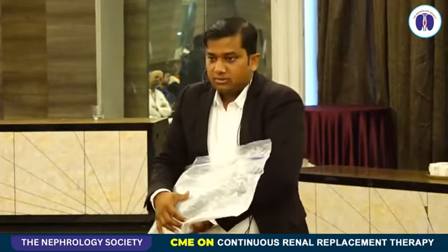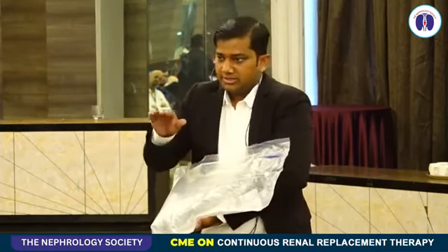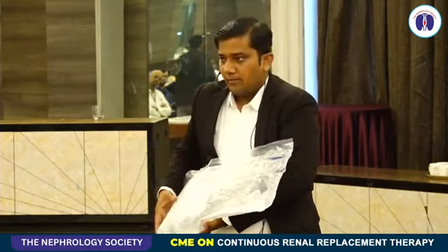Because why we are so particular in this case: once you go to the bag change, or once you are stopping the treatment, it is basically interrupting the treatment and it increases the downtime. So that is the reason.